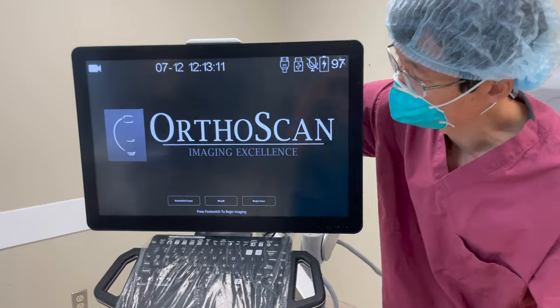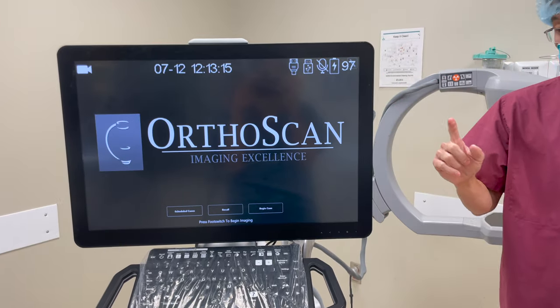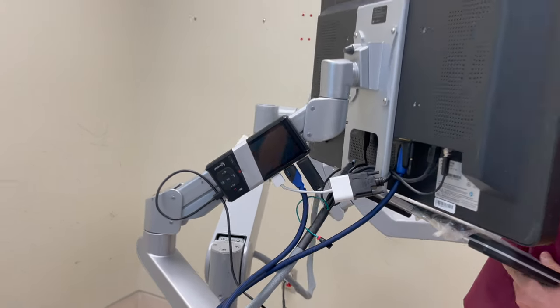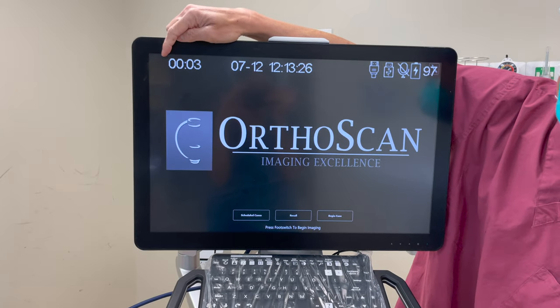A little tape and you're good to go. When you're ready to record, you're going to take it and push this little red button right here, and what you would see is that the signal converts from a camera icon into a red blinking dot.